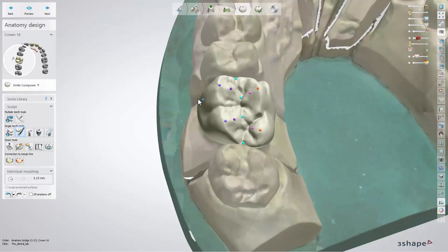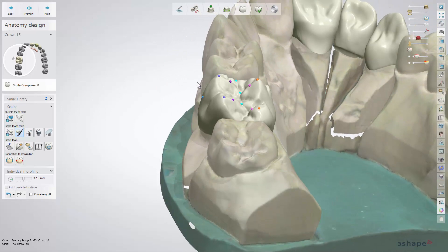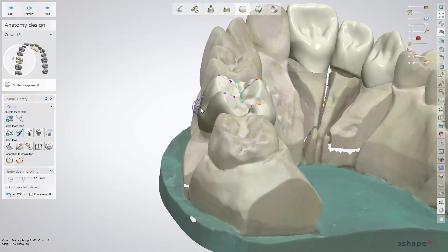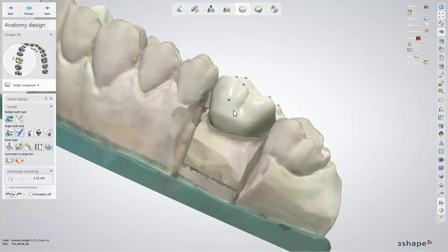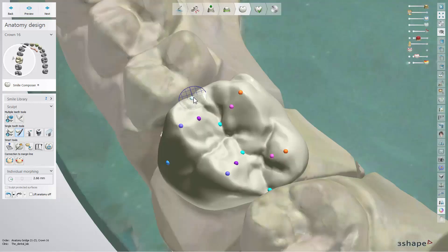Individual Morphing. By using this tool you can move points on the tooth in the desired direction. The net around the cursor shows the direction the morphing is applied and a green circle shows the affected area. Hover over the point, hold Shift and scroll the mouse wheel to change the radius of the affected area, or use a slider in the design tools window. Points are divided into different colour groups and you can drag them separately, or hold down Shift to move the entire control point group.